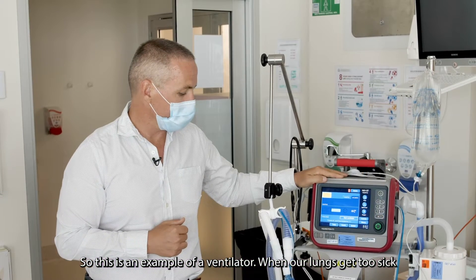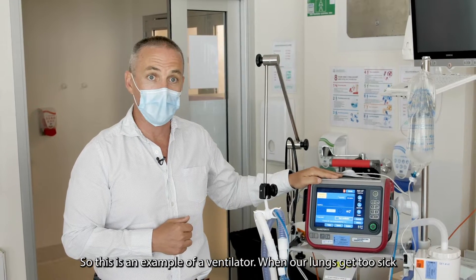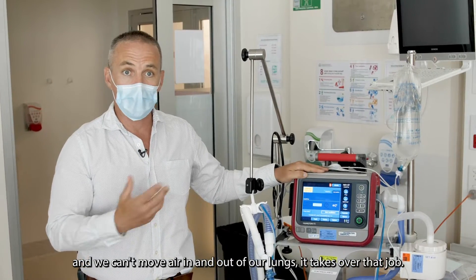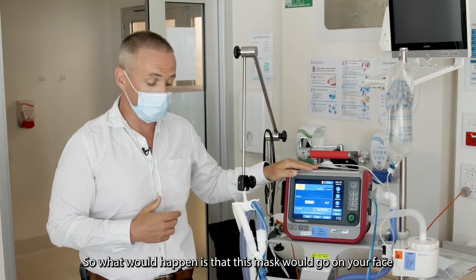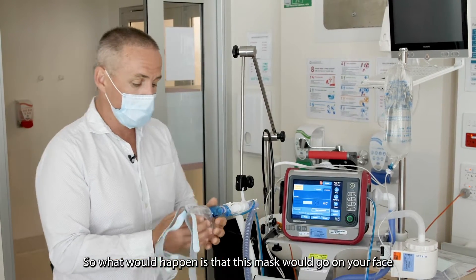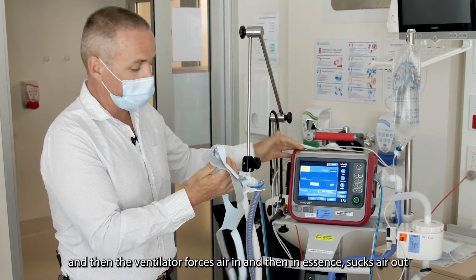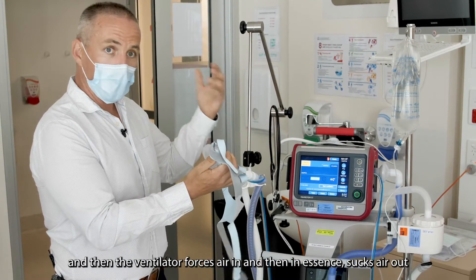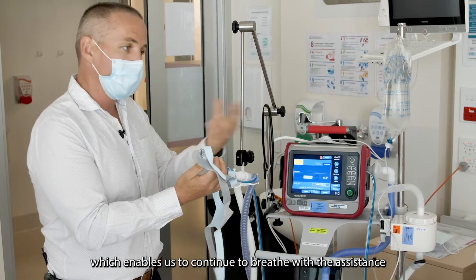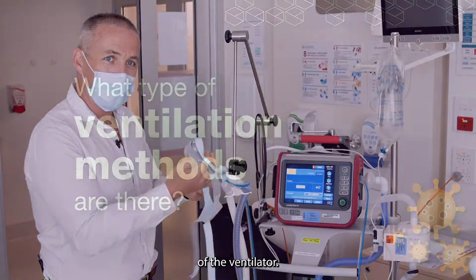So this is an example of a ventilator. When our lungs get too sick and we can't move air in and out of our lungs, it takes over that job. This mask would go on your face and then the ventilator forces air in and then sucks air out, which enables us to continue to breathe with the assistance of the ventilator.